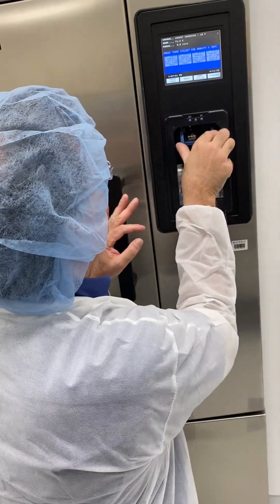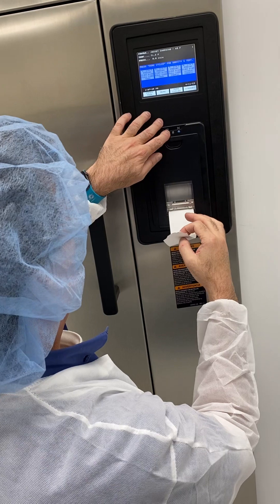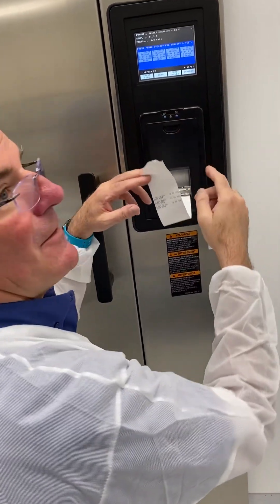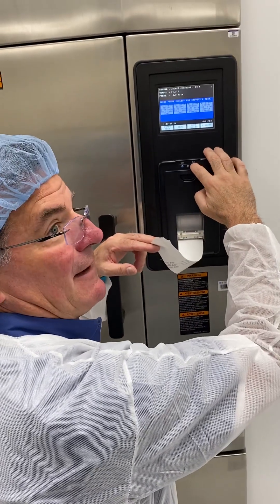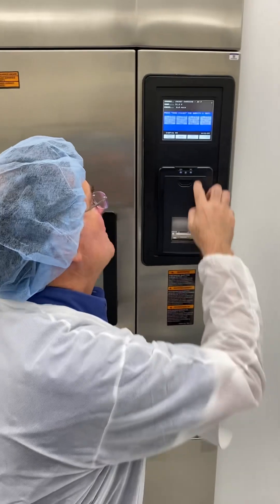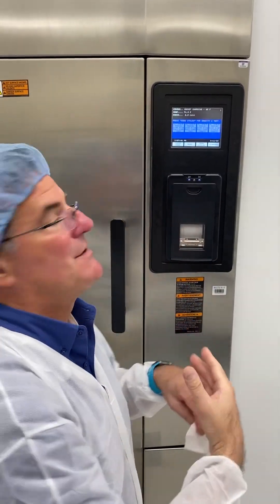I think you all are probably going to let it come out and tear it off when you're done. We want to get in the habit of using the scissors, because if you rip it that could jam the machine — so we want to use the scissors.